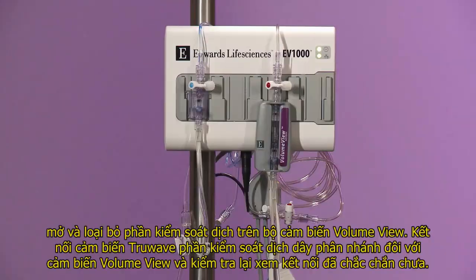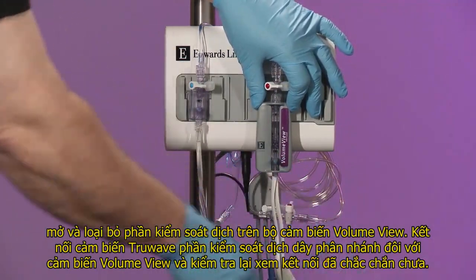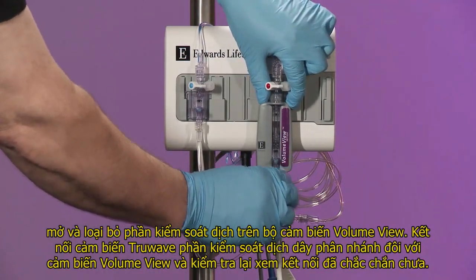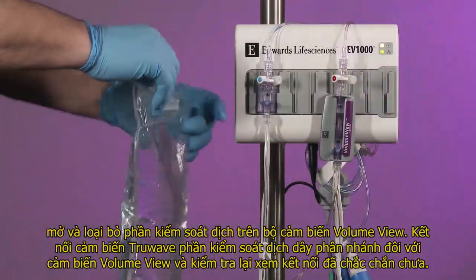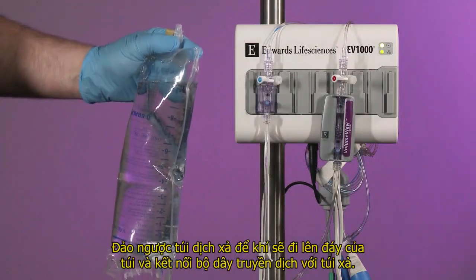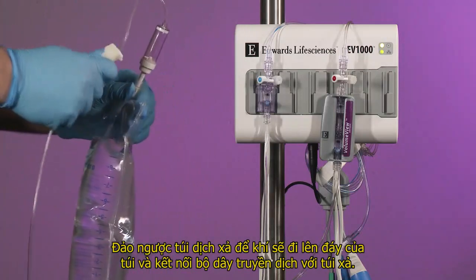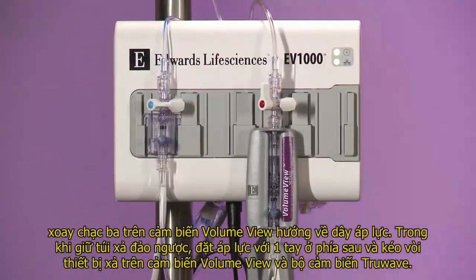Remove and discard fluid administration set on the VolumeView sensor. Connect the TrueWave transducer's free connection of the bifurcated fluid administration set to the VolumeView sensor and confirm that the connection is secure. Invert the flush bag to allow air to rise to the base of the bag. Spike flush bag with fluid administration set. Turn the VolumeView sensor stopcock toward the pressure tubing.